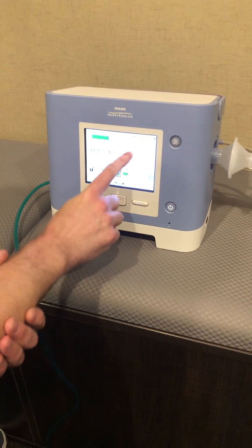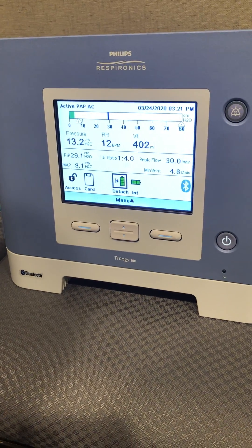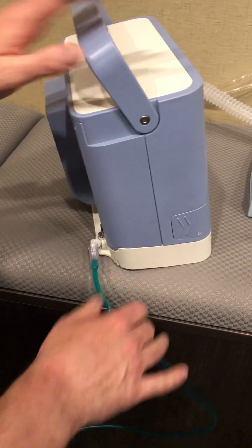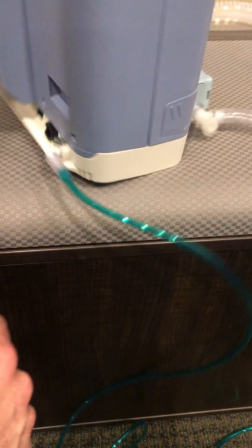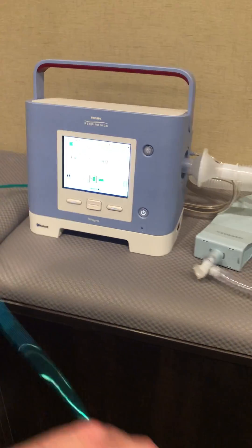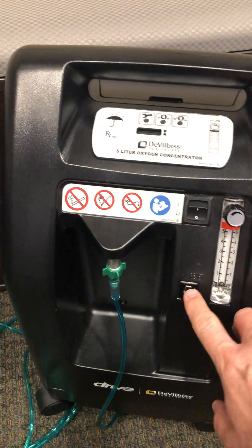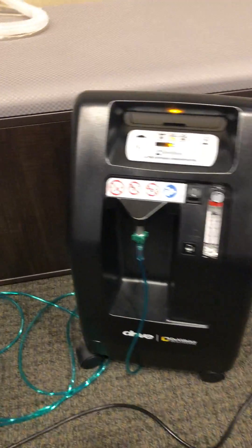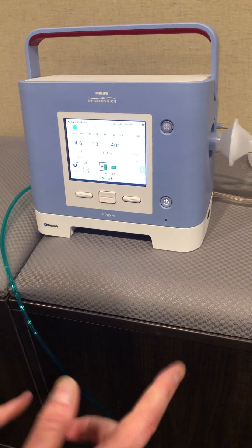You'll see that we're getting our 400 tidal volume along with a rate of 12. Obviously many of these patients will be on oxygen — there are multiple ways to do that, but for this demonstration we're going directly into the back of the Trilogy where the oxygen port is located. We have it connected to a stationary concentrator. That is your active circuit, single-limb invasive setup with exhalation port.